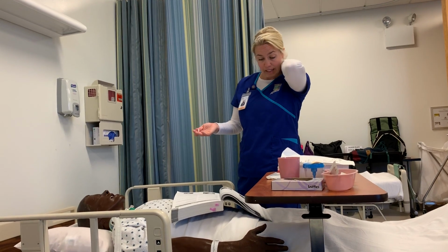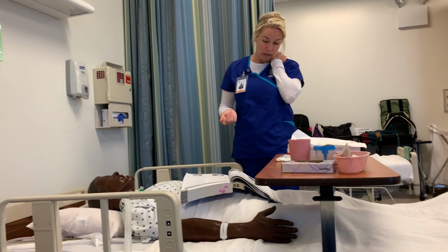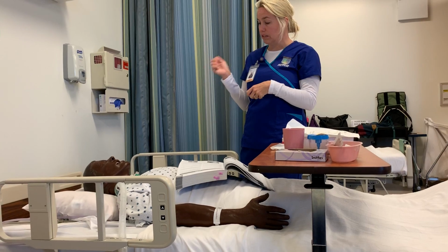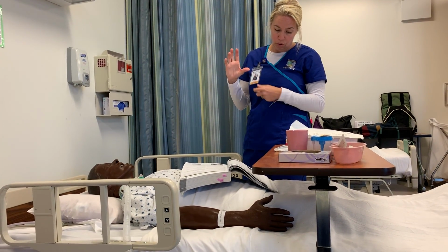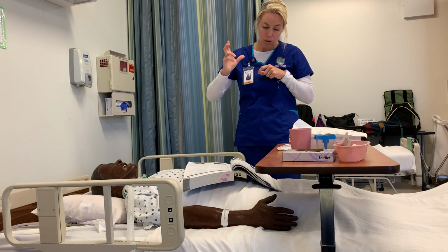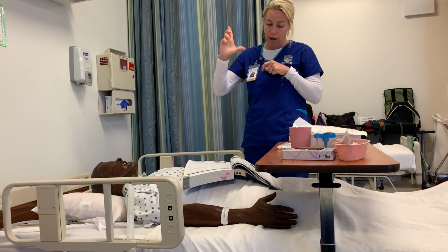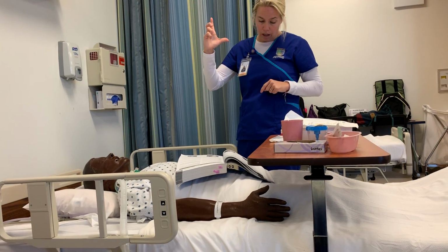I would explain the steps for administering the squeeze and breathe MDI without the spacer. And then we would insert the canister into the holder, removing the mouthpiece cover from the inhaler. Then we would shake the inhaler vigorously about 5 to 6 times, holding the inhaler upright with the dominant hand. This is the inhaler here, this mouthpiece.